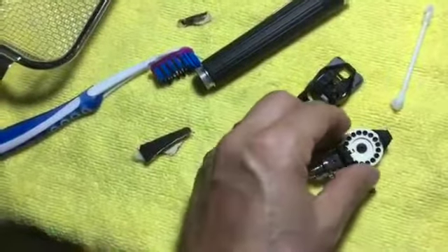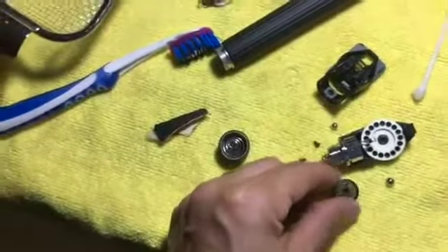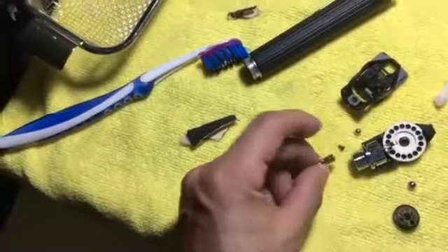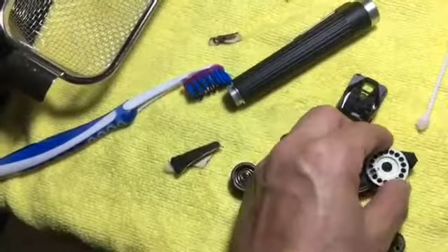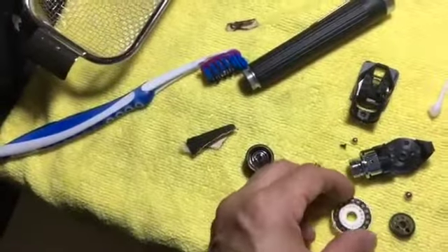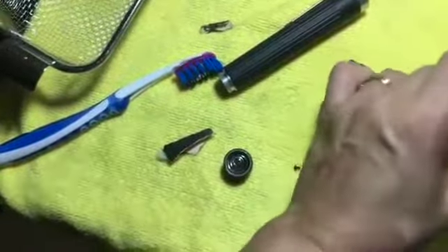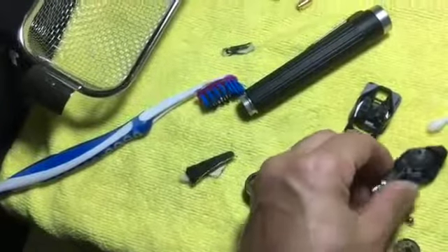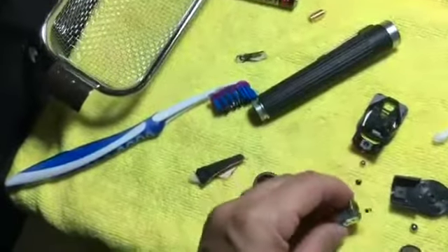The first thing you need to remove is the wheel that rotates and changes the red-free light, the white light, and the half-circle mode. You remove the bulb first, then remove the diopter knob control. Note the way that when you turn it, the numbers stay at the bottom. I washed this earlier with soap and water and also used the ultrasonic cleaner.